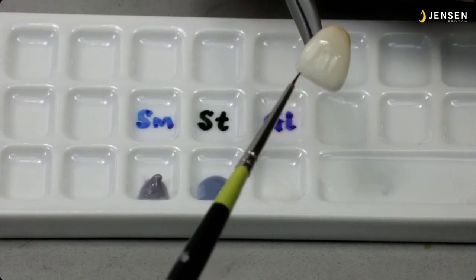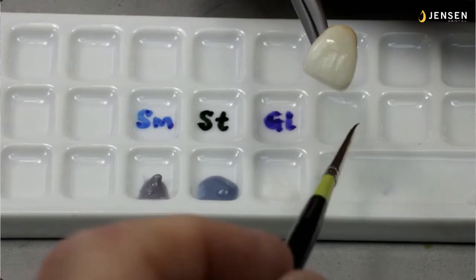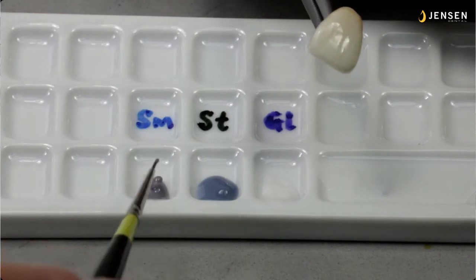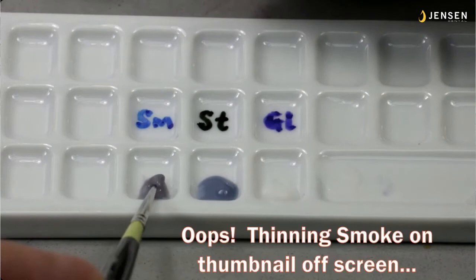So now I'm going to apply a little bit of the smoke. And the smoke's great for the illusion of depth and to make it look like it's slightly lower in value, so that the lowering in value that's inherent with translucence in teeth. But mind you, there's 80% ceramic and 20% pigment.